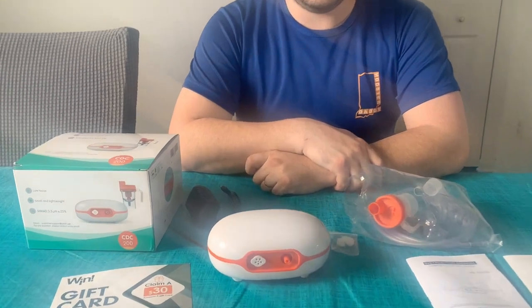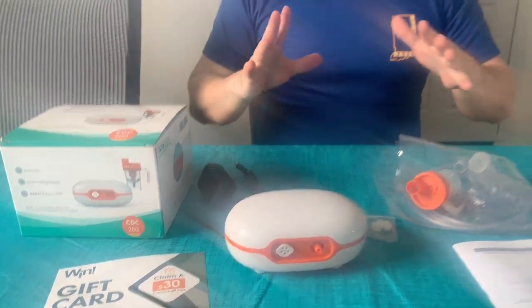Hello everyone, Liam here. I want to talk to you about this nebulizer that I picked off Amazon not too long ago. I kind of just want to go through an overview on how simple and easy it is to use this model.